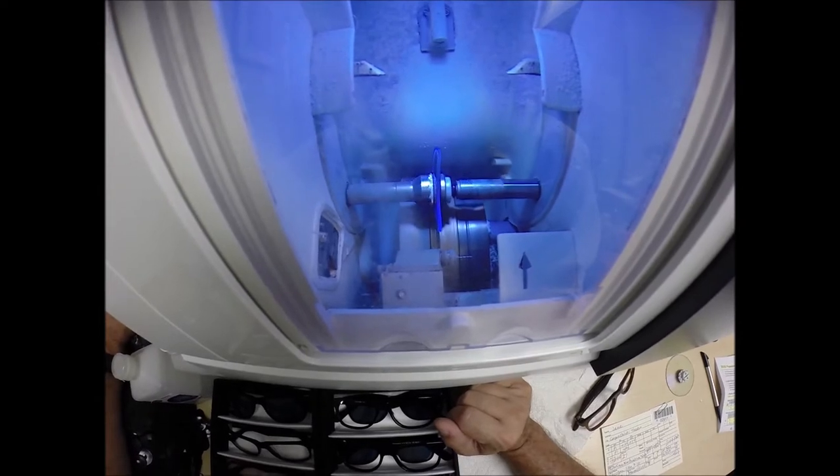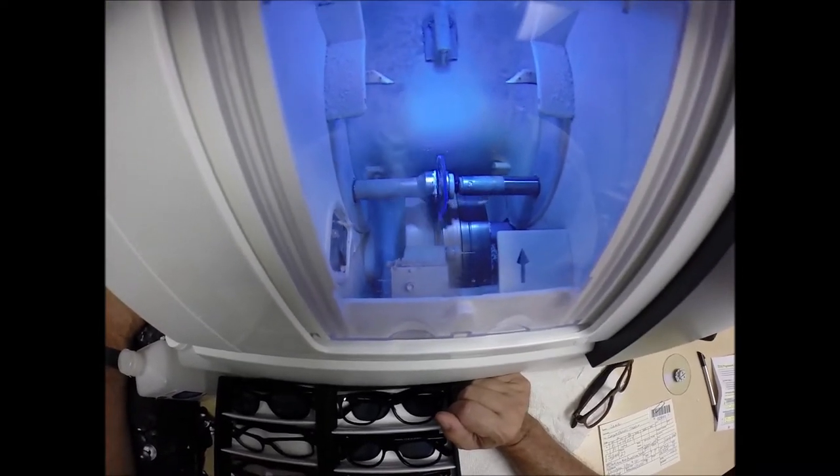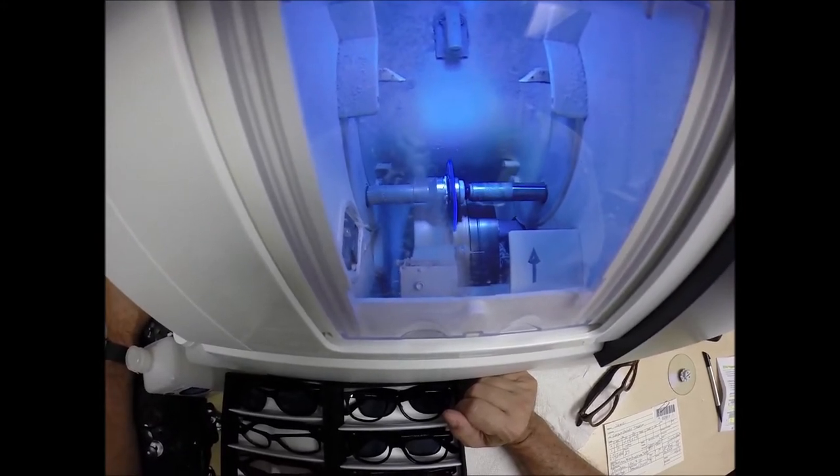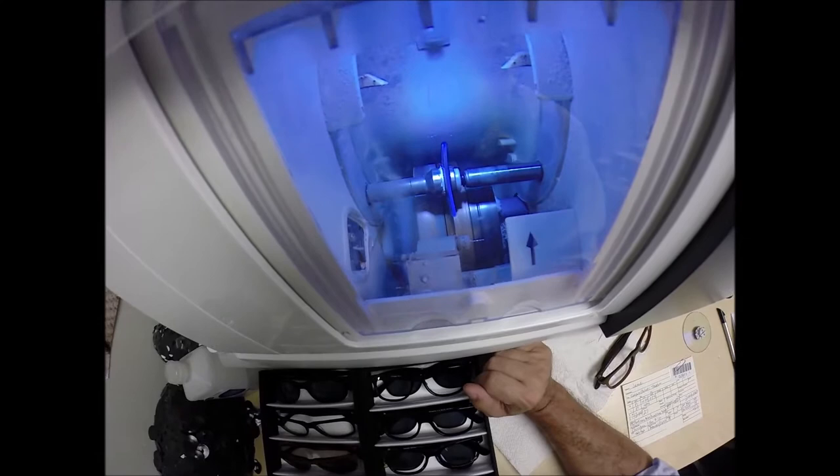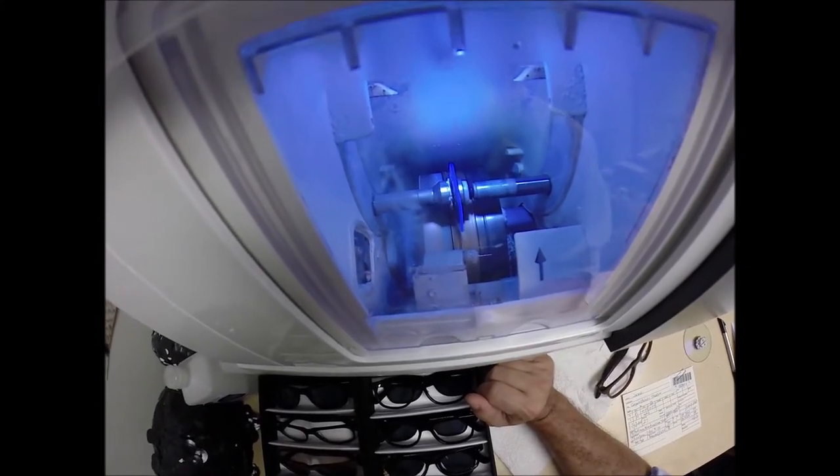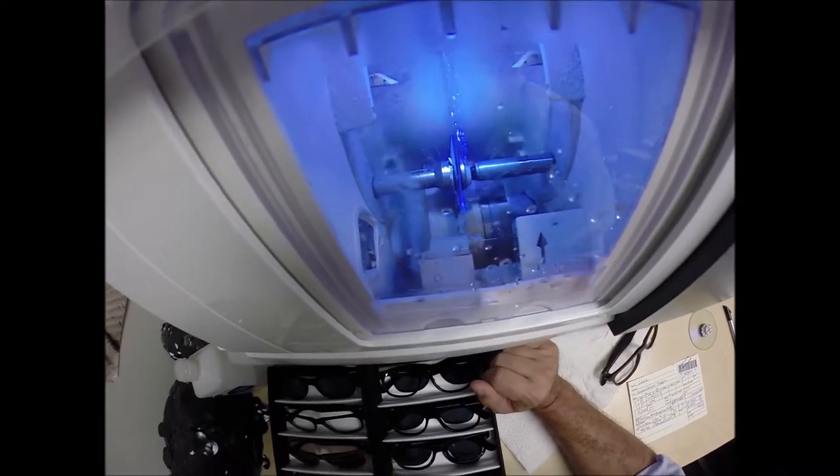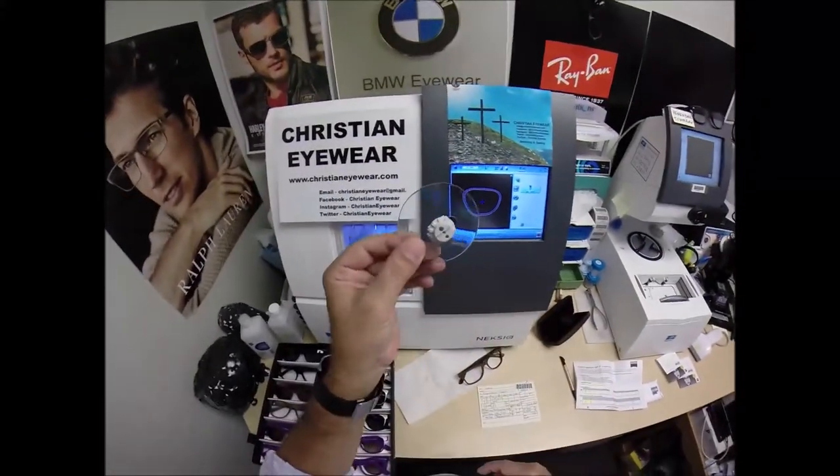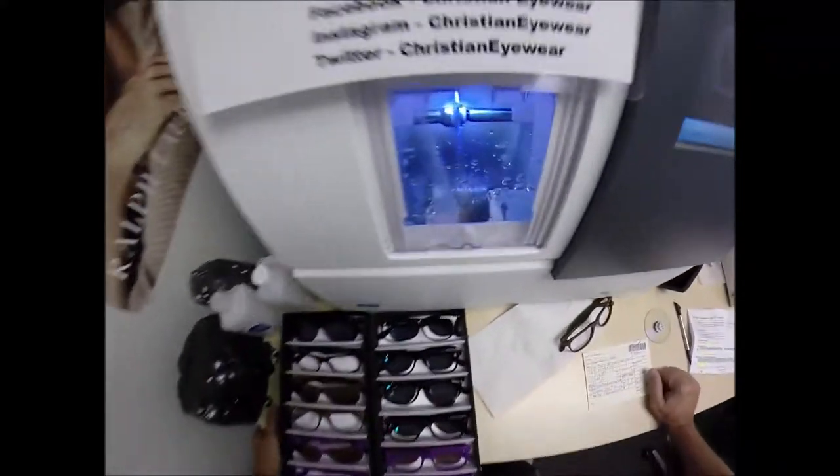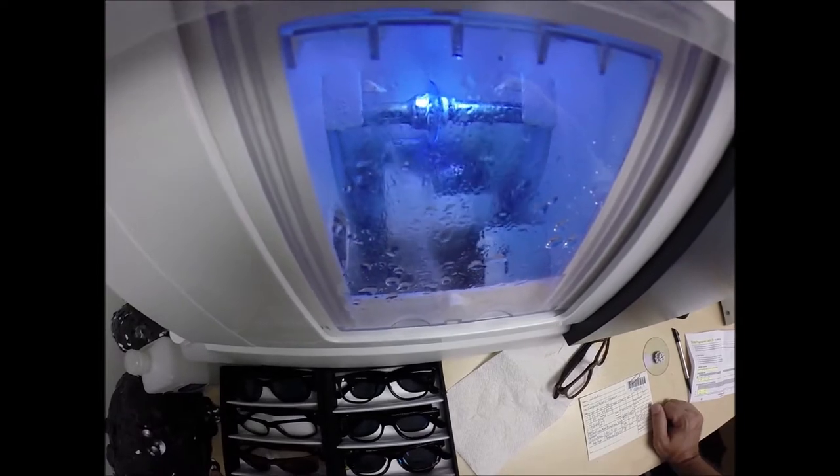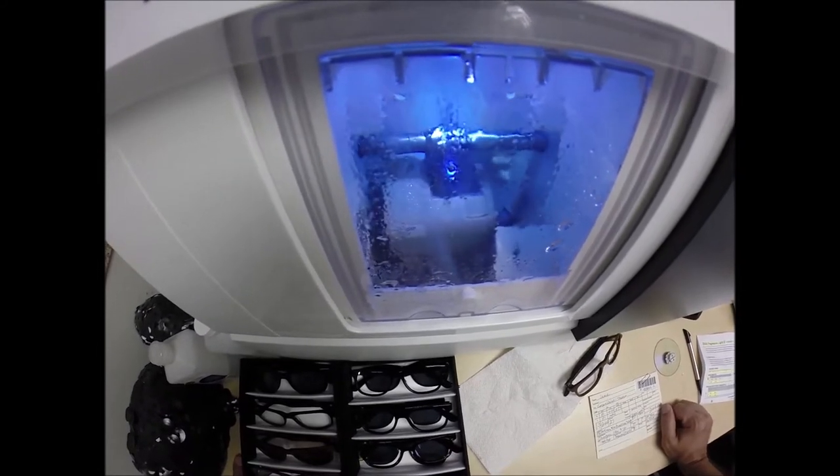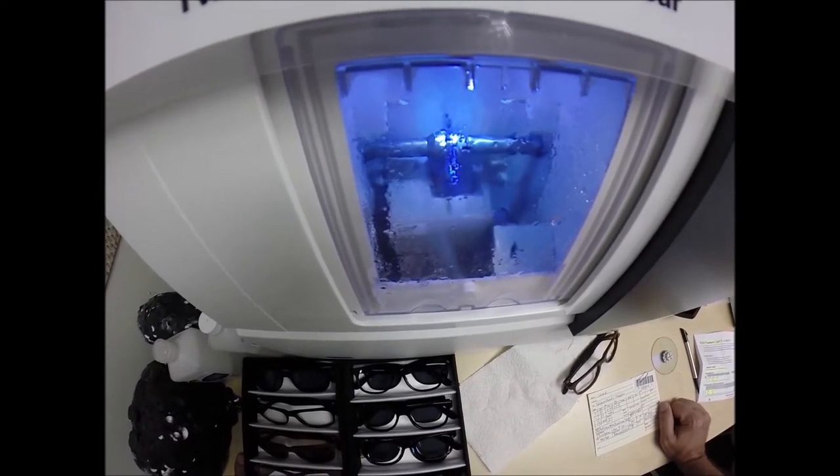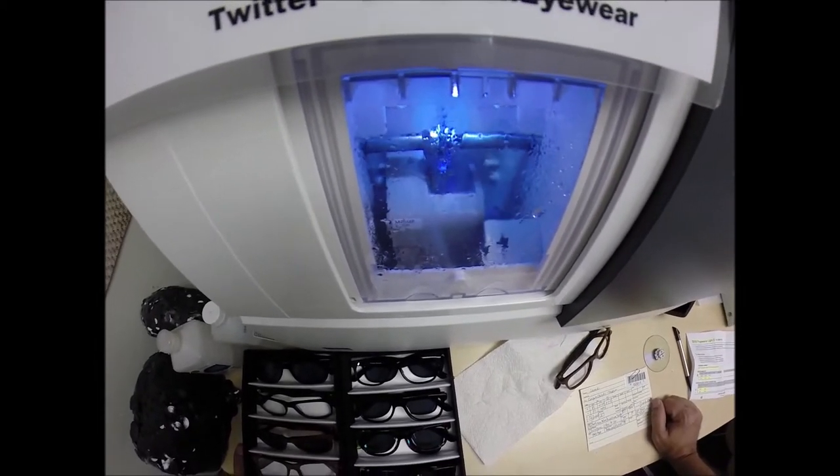Now, with the photo fusion qualities. Now, Zeiss invented the photochromic lens. They had the patent rights to it for 7 years. Once that wore off, they sold the technology to different labs. Such as Essilor, which they branded as Transitions. But, Zeiss had the Generation 8 technology long before Essilor. They also invented Anti-Glare, which they sold after their patent ran out. And, again, Essilor branded that Crizal. Zeiss calls theirs Duravision. Now, the Duravision Silver that you got is three treatments in one. The first treatment is it reduces glare when driving at night. Particularly driving at night in the rain. But, from street lights, stop lights, computer screens, overhead fluorescent lights and such. The second feature is it reduces reflection. So, when someone is looking at you, they're not looking at the reflection in your glasses. So, it makes for much better eye contact. Plus, if you ever take a selfie, you're less likely to see the phone and the lens. Now, the third feature. The practical side that I like. It comes with the industry's hardest scratch coating. Because the machine that applies the Anti-Glare takes over 24 hours to vaporize eight different coatings onto the lens. So, because of the time and the expense, they put the industry's hardest scratch coating on there to protect your time and investment.